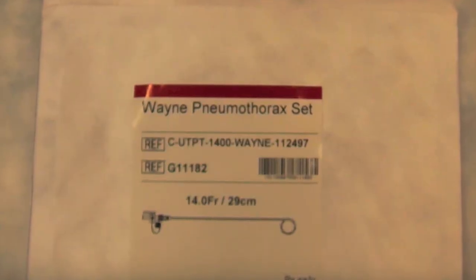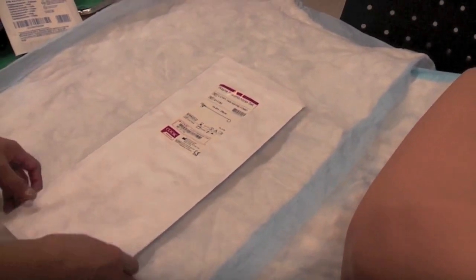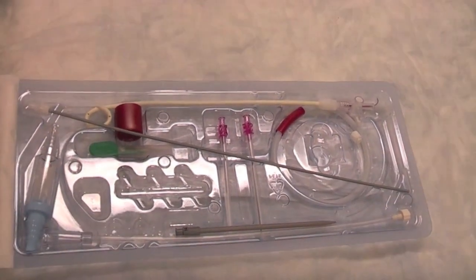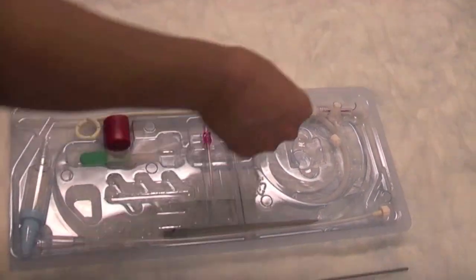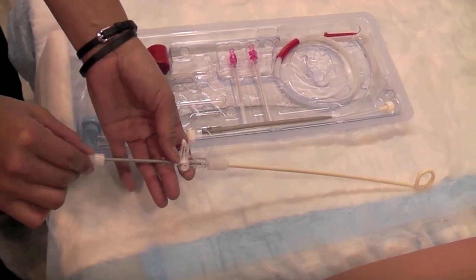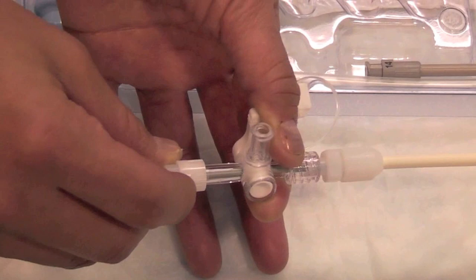The new pigtail catheter has several differences from the old one. It has a slightly larger diameter of 14 French, and it has a new part called the obturator, which is situated diagonally across the package when opened. During preparation for the procedure, insert the obturator into the stopcock, which is already attached to the pigtail catheter — this will unwind the curl of the pigtail. Attach the obturator to the stopcock by luer lock.